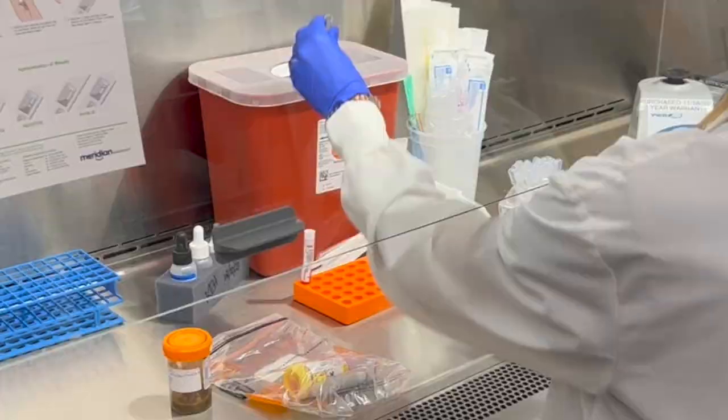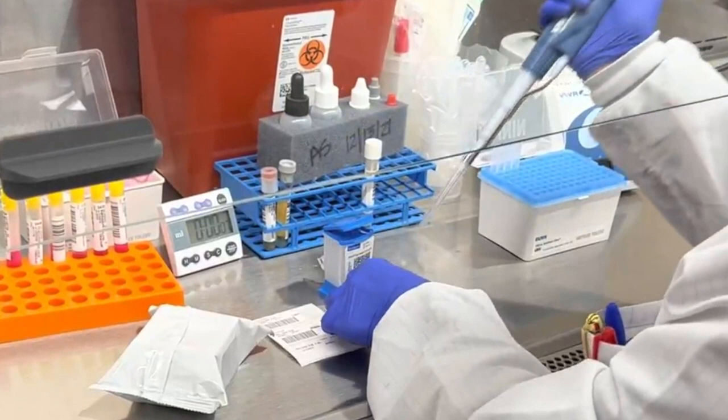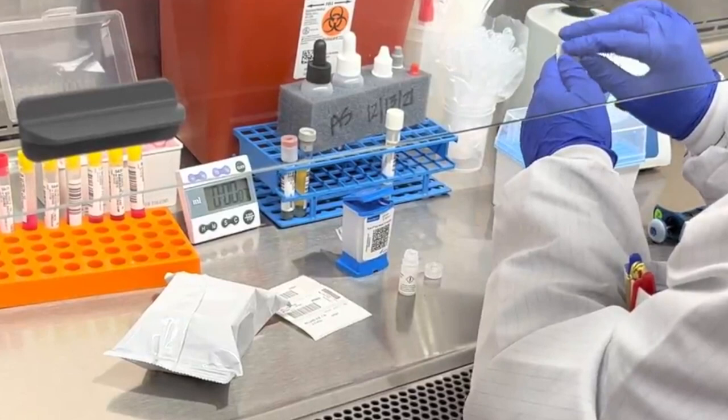In the stat lab, we also perform rapid PCR using the Cepheid system. This detects nucleic acid targets for bacterial and viral pathogens, including mycobacteria tuberculosis, staph aureus, strep pyogenes, COVID, flu, and RSV, as well as detects markers for antibiotic resistance, including methicillin-resistant staph aureus, rifampin-resistant tuberculosis, and carbapenem-resistant enterobacteriales.